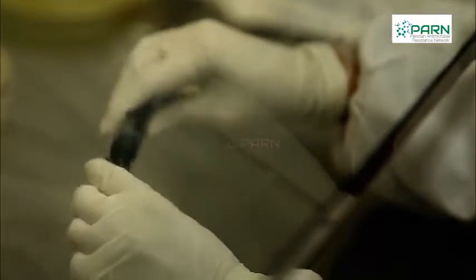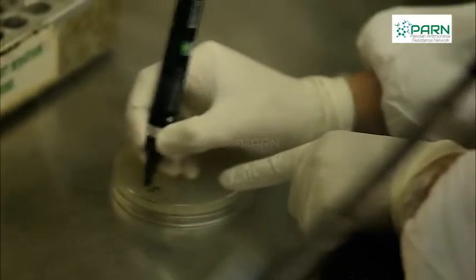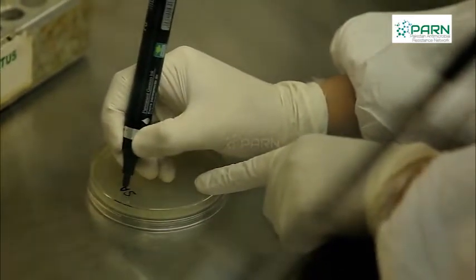If surface of agar is visibly wet, plates can be placed in an incubator for 10 to 15 minutes. Each plate is labeled with the specimen details.